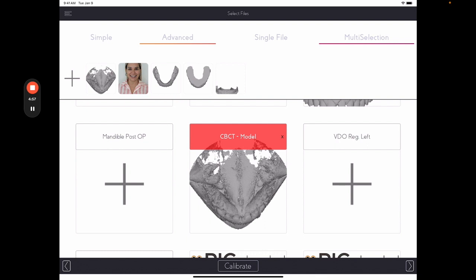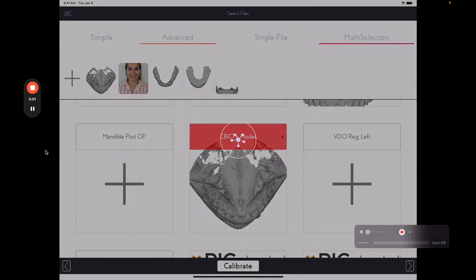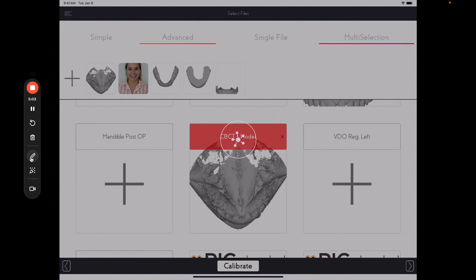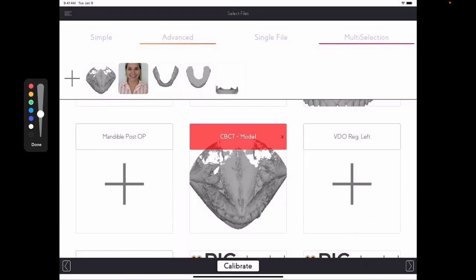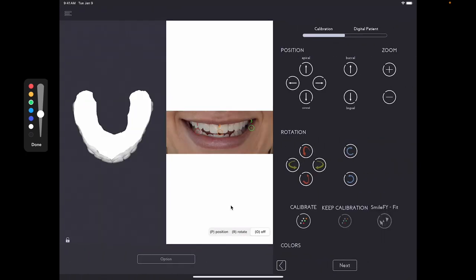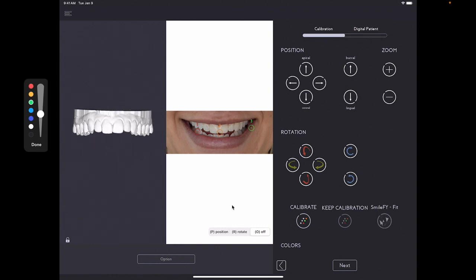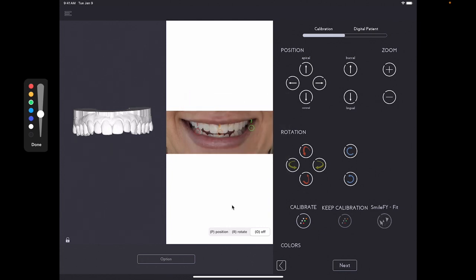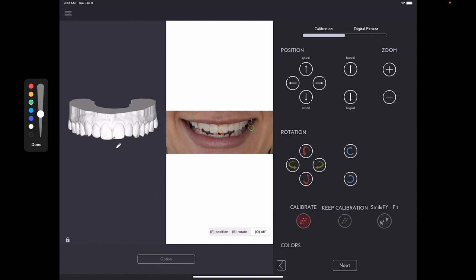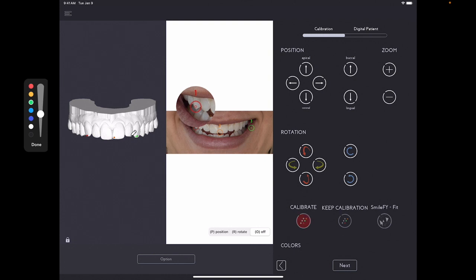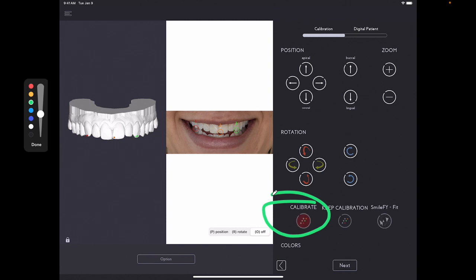And then here at the bottom, you will click on Calibrate. We will begin by setting three points onto the STL and three points on the photo. Start always from the left to the right. Over here at the bottom, we have a little locker where you can lock the file so it doesn't rotate anymore. So let's start by going from left, central, and right side of the screen. One, two, three. And on the photo, you will drag the targets and place it somewhere close to where you place those dots in the STL. Now let's tap on Calibrate.